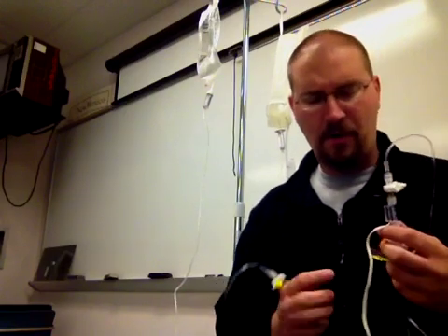Specifically the three modalities that we talked about earlier: the arterial line, the central venous catheter, and the pulmonary artery catheter.